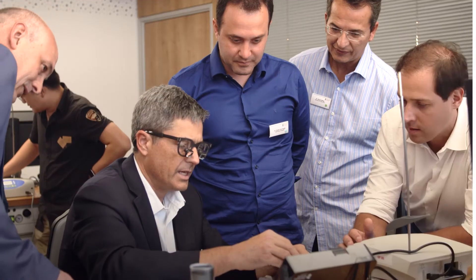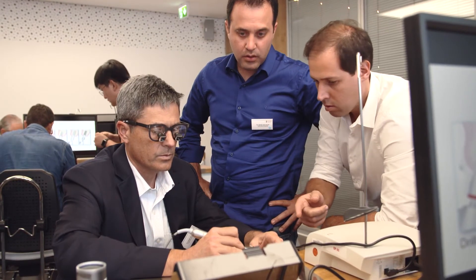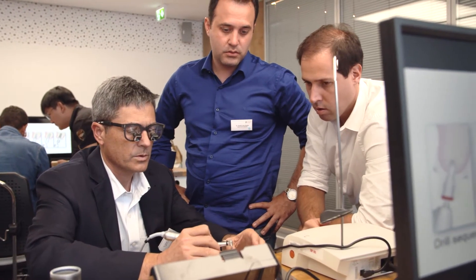In my opinion, every new change in your practice requires a little bit of willingness to learn about it. It's so easy to handle this software that it wouldn't require a lot of time. I think the main concern of the company was to make CEREC more accessible to all dentists and with fewer clicks on it.